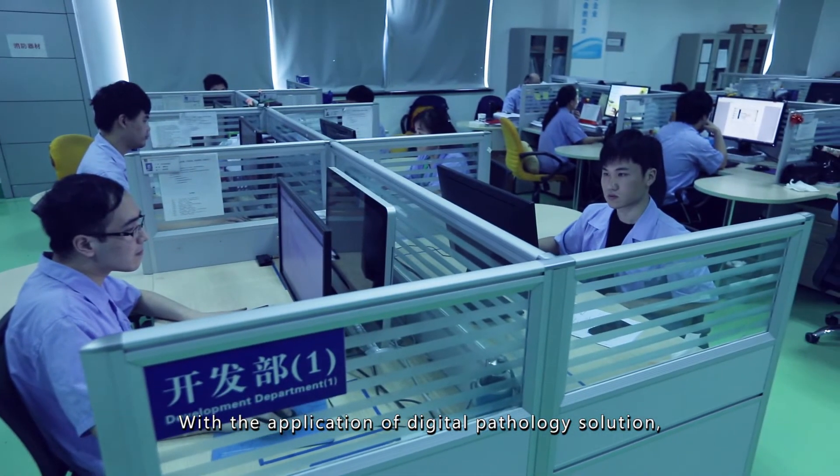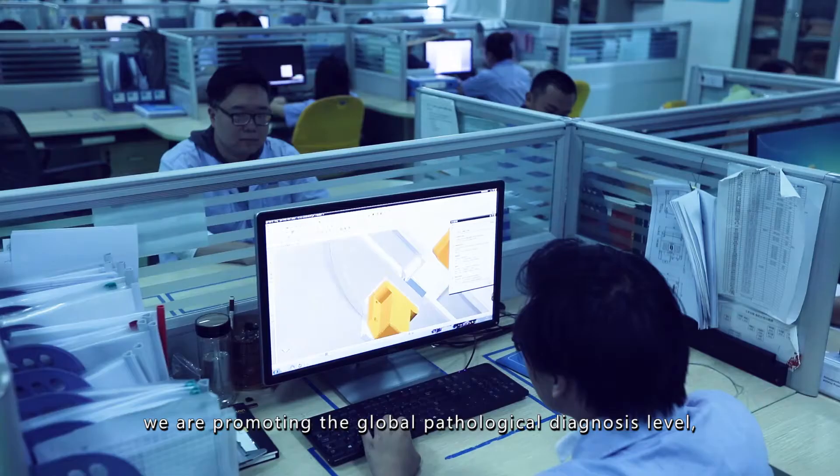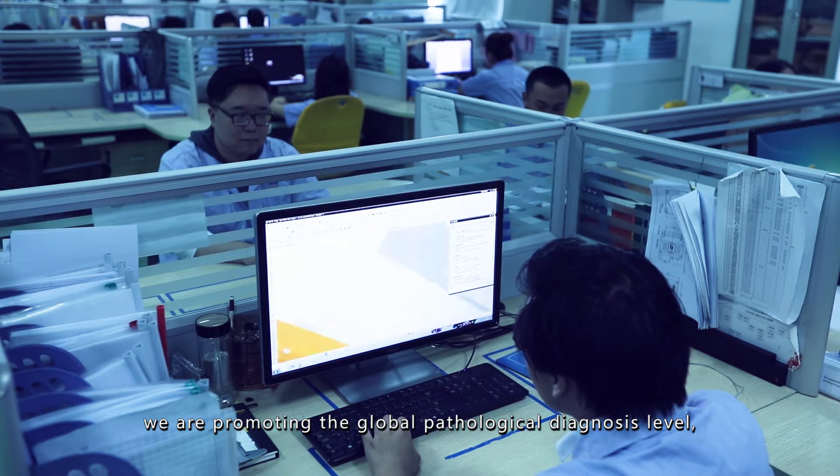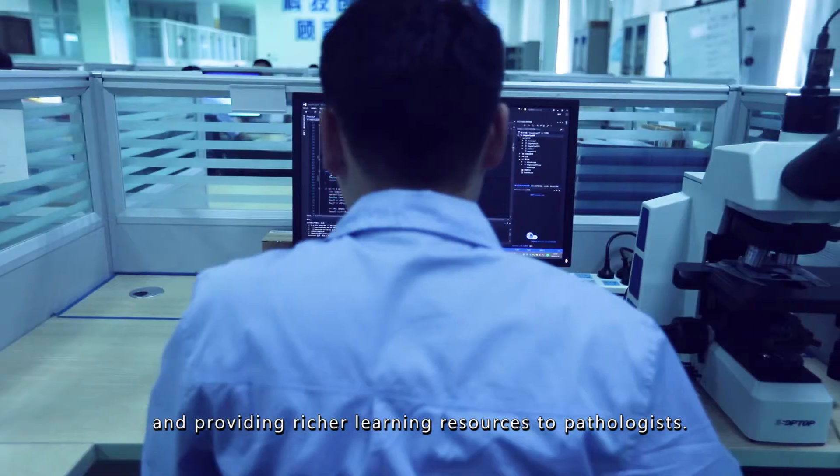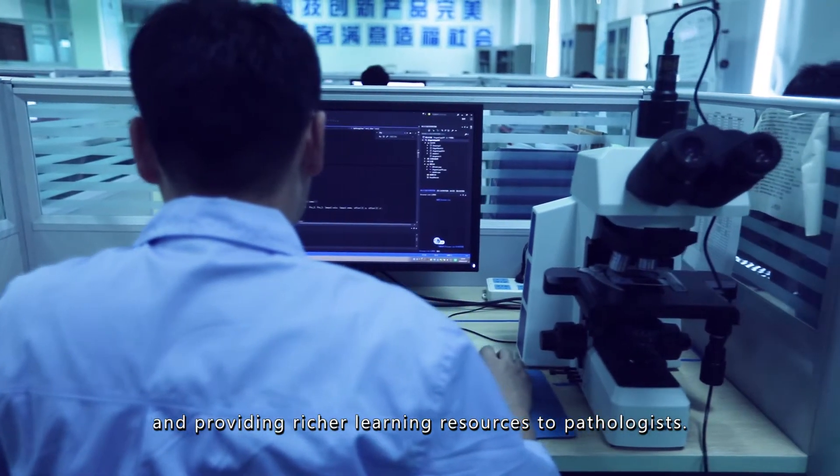With the application of Digital Pathology Solution, we're promoting the global pathological diagnosis level, improving the poor medical environment in remote areas, and providing richer learning resources to pathologists.